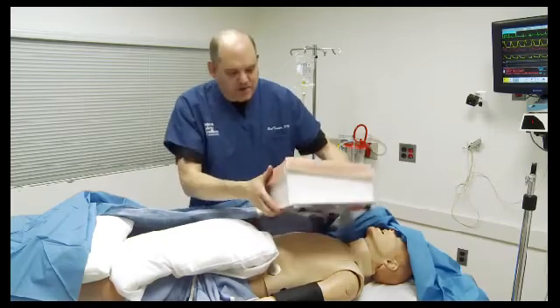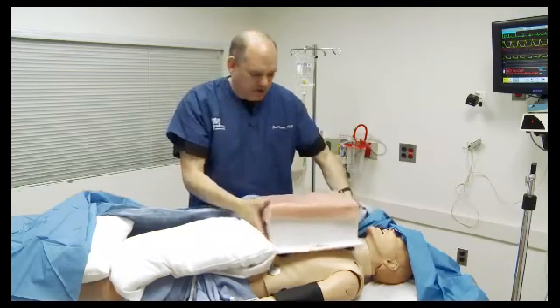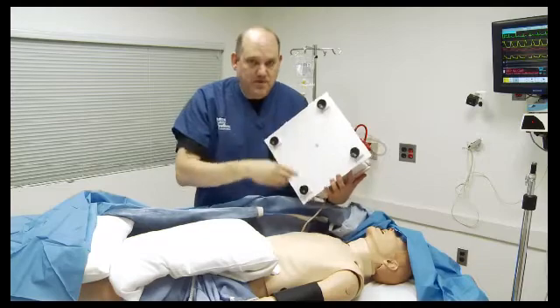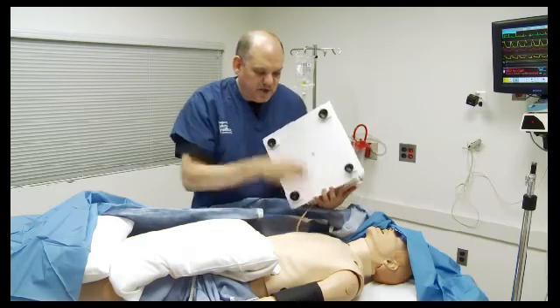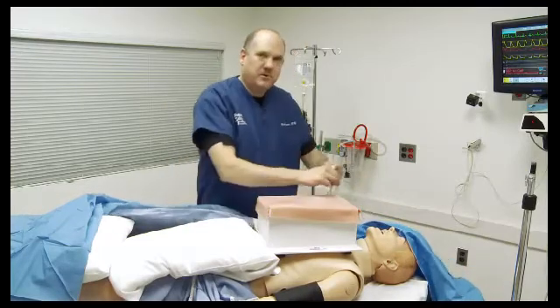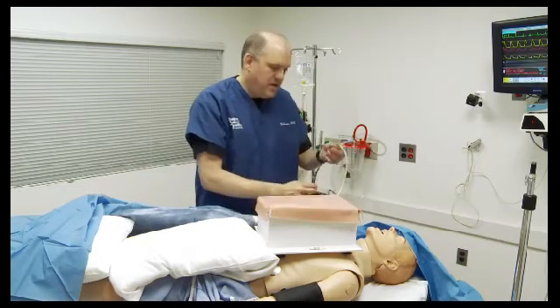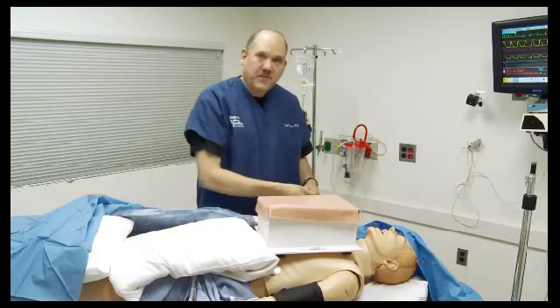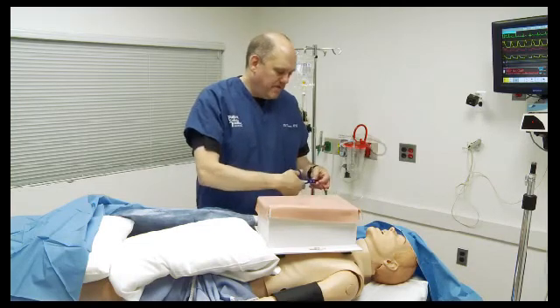So it's a simple project box — that's what it looks like out of the chest. It has little suction cup feet on the bottom. The suction cup feet don't sit perfectly well on SimMan's chest, so in the next mock-up we're going to put some industrial grade Velcro on the bottom and some Velcro on an old chest skin dedicated to this project. Coming off the back of the project box, we have a piece of latex tubing which feeds into a blood supply — in this case an IV with red colored IV fluid inside a pressure bag underneath the stretcher. When the case gets going, we'll release the clamp, which starts the vessel inside the chest bleeding very slowly.